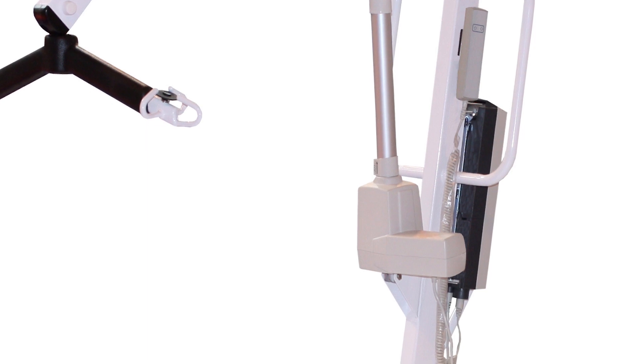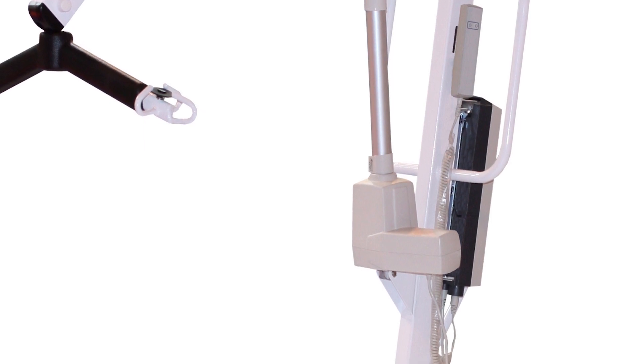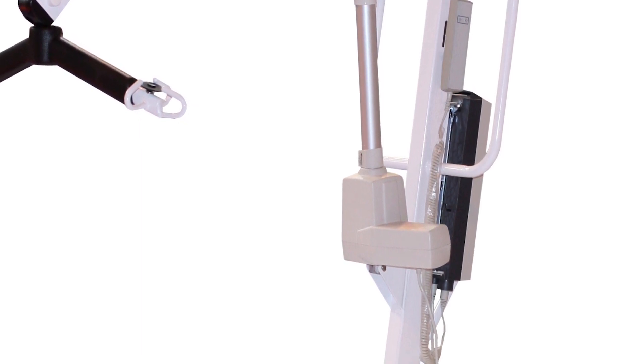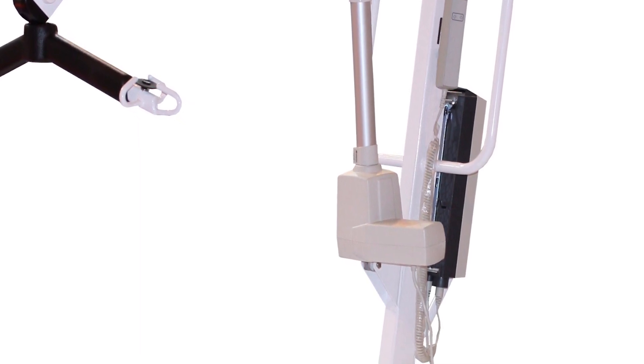In the case of a passive hoist, the patient is not required to make any effort independently.